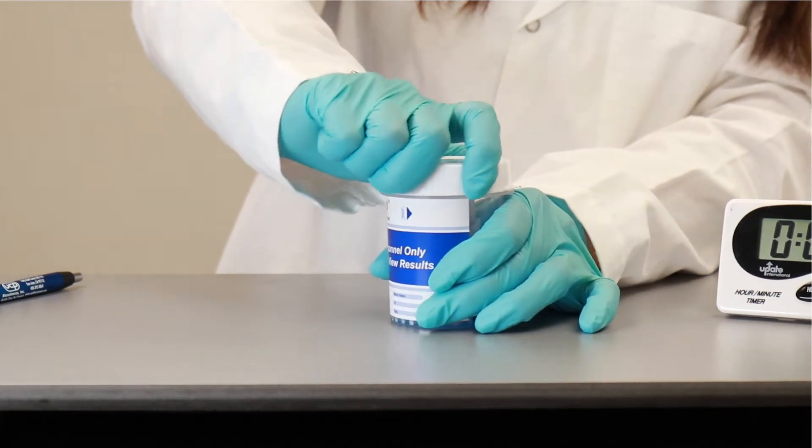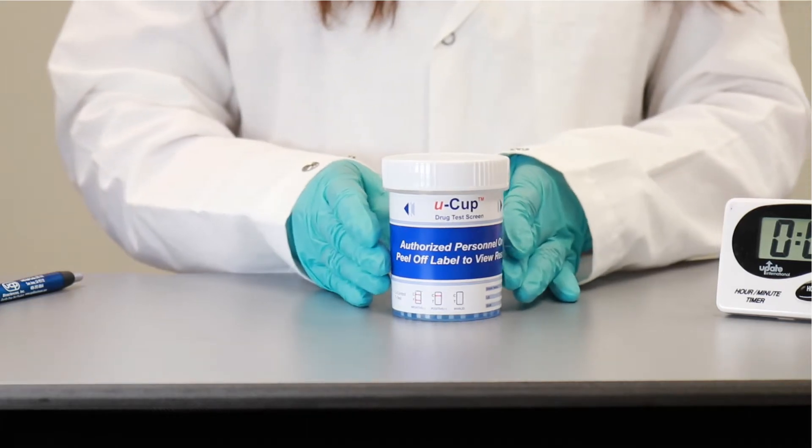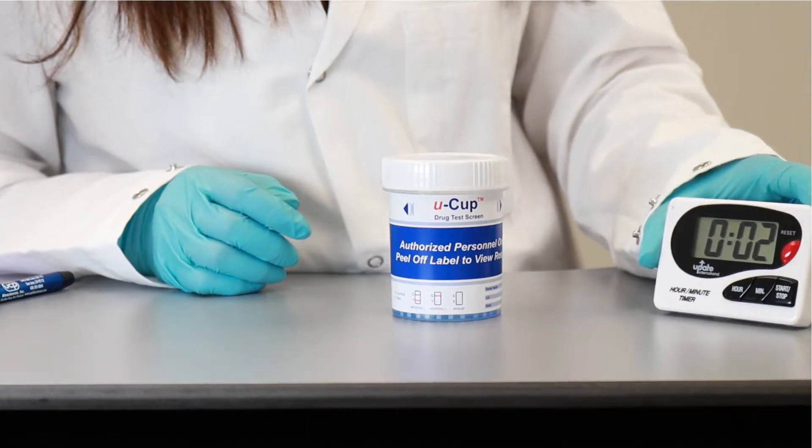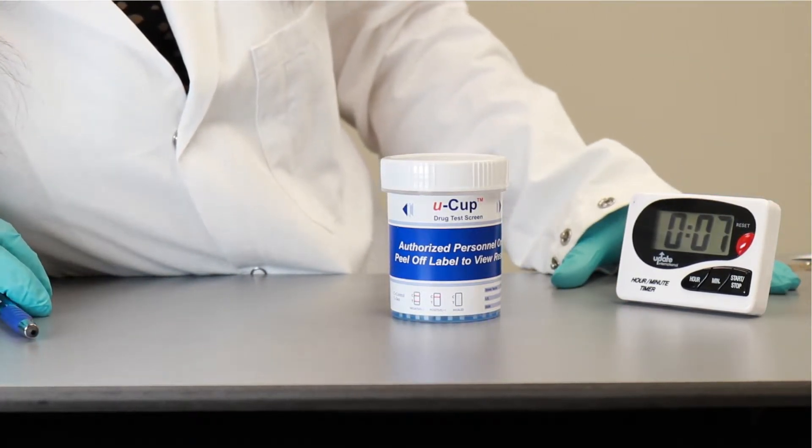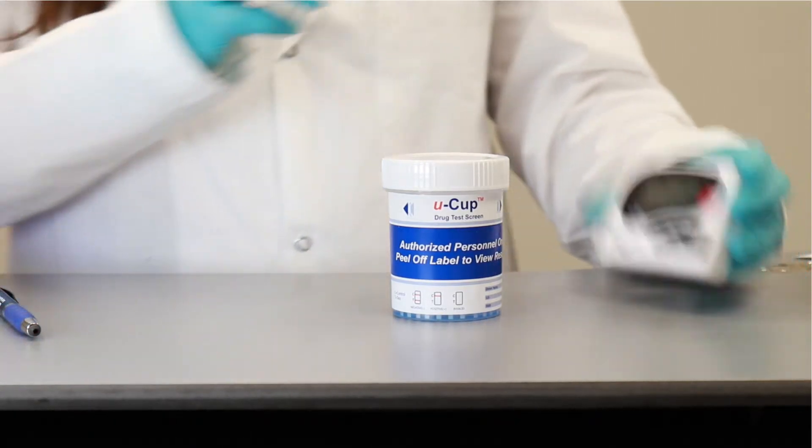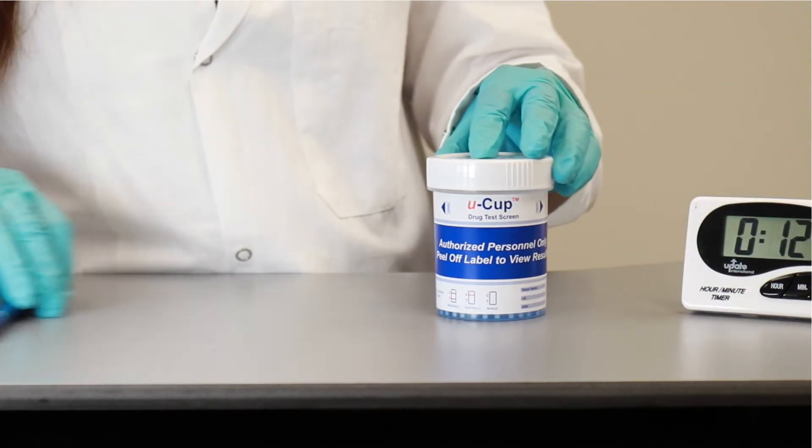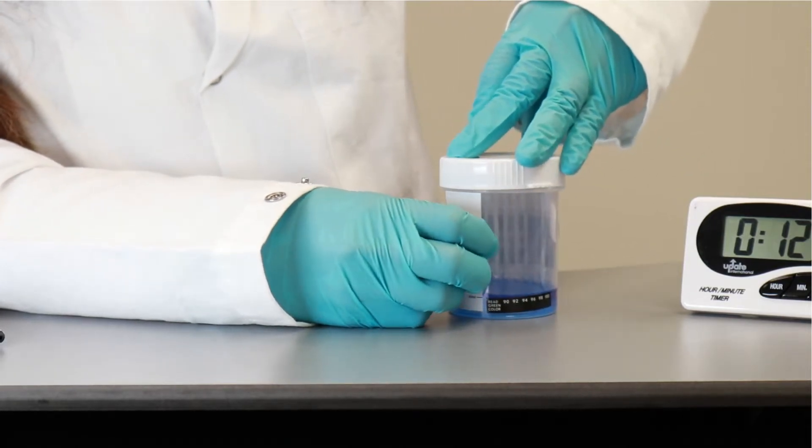You need to keep the test cup straight up, and wait 10 seconds. So after 10 seconds, you can peel off the label, and results are ready to be read in 2 to 4 minutes.